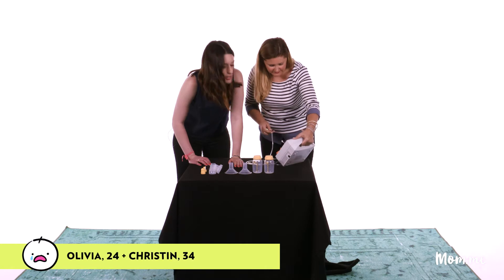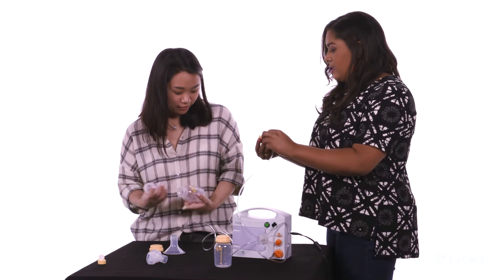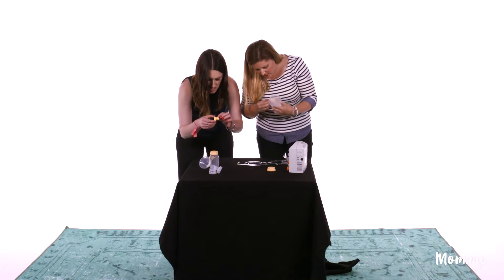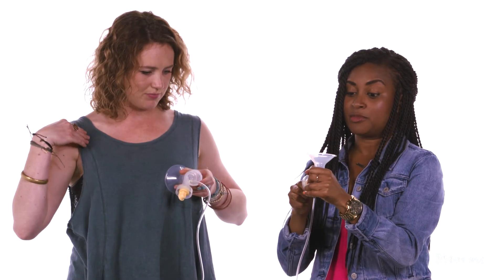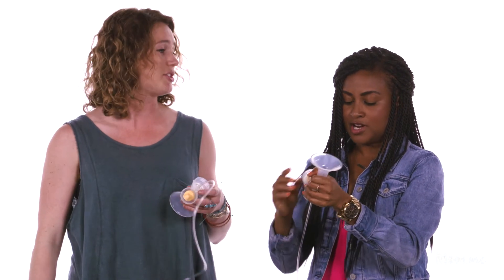La leche — that means the milk, but I don't know, I've never lactated before. Is it painful? Yeah, it feels like skin. Your baby would be starving by now — it would be crying at me and I'm like, I'm doing everything I can!